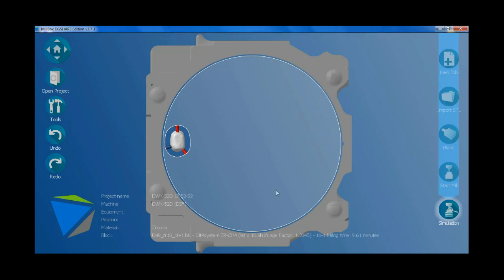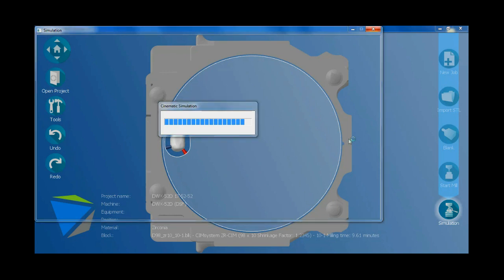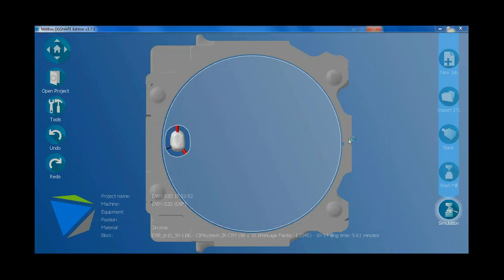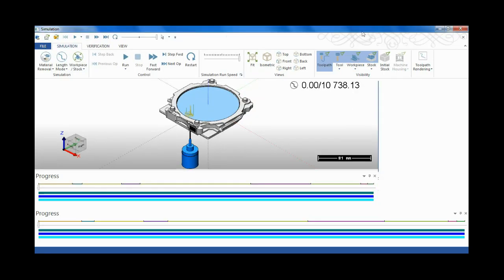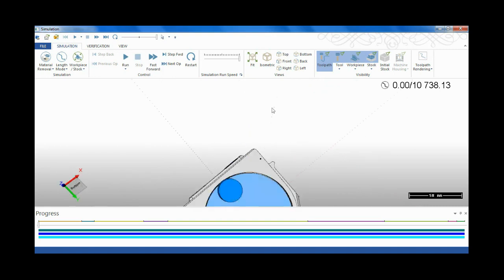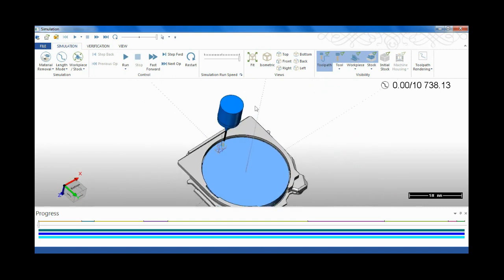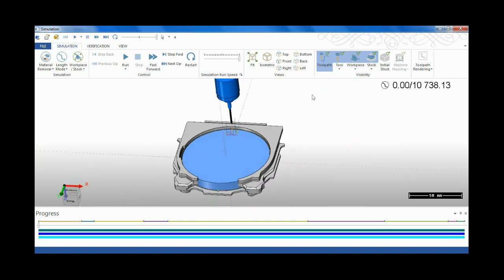It is also possible to simulate the result by simulate option on the right side. Wait for the window to come up. You see I have a milling machine here virtually with different options.